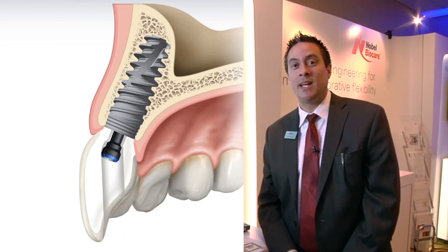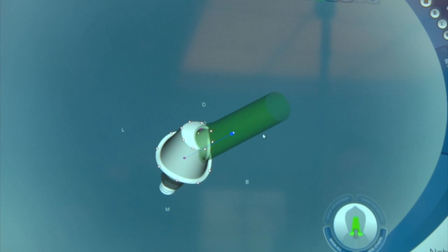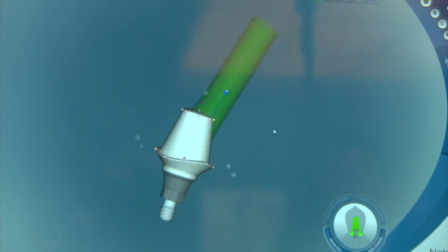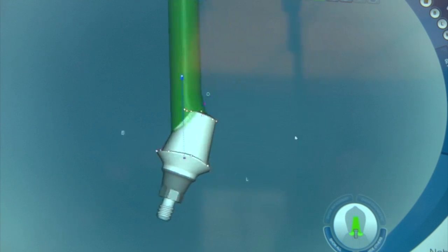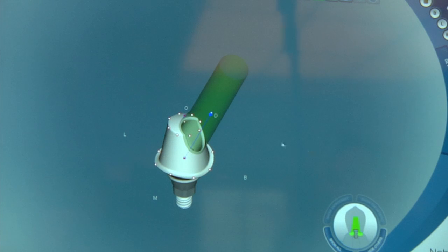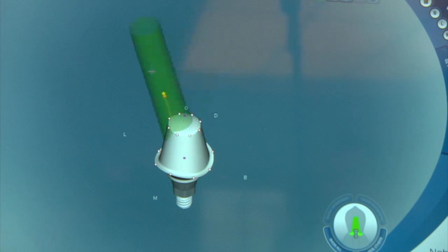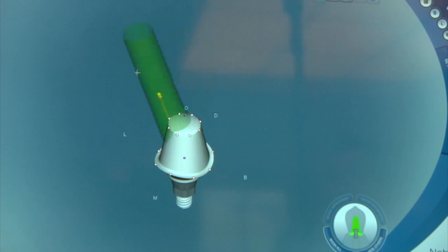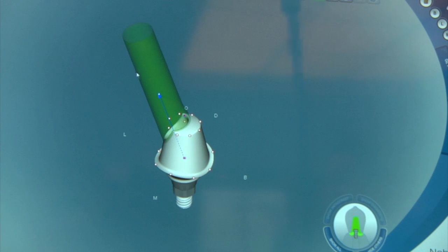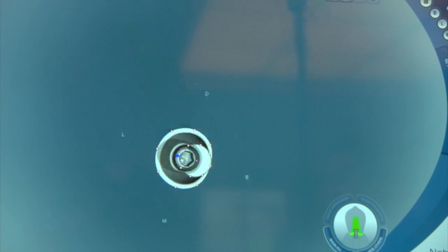This is the design software of the angulated screw channel abutment. You can see we have a normal custom abutment using the Nobel Procera software, and we can change this angulation up to 25 degrees, taking it from a facial screw access to more of a lingual.